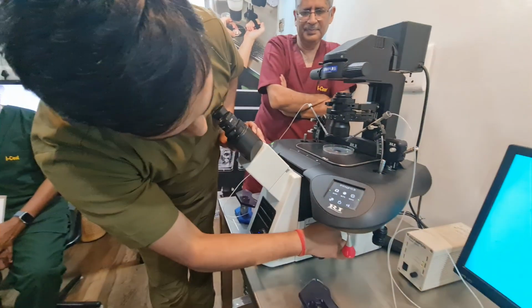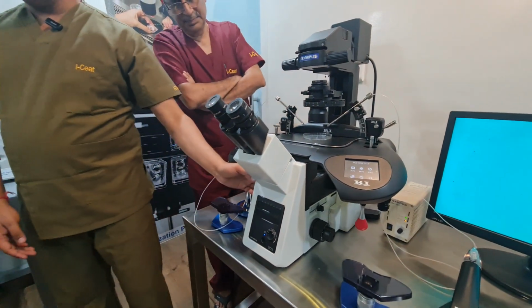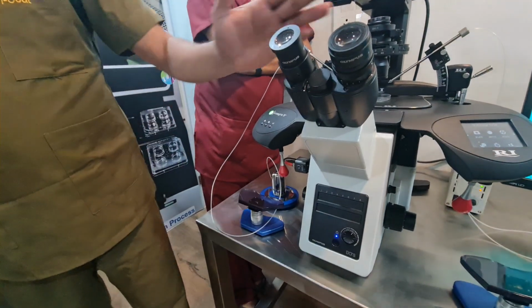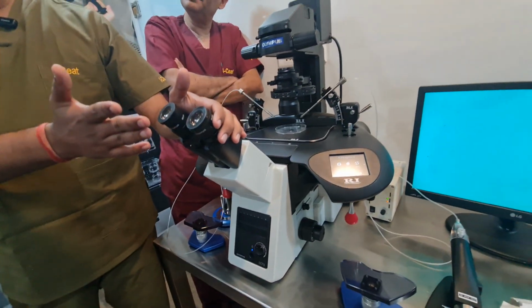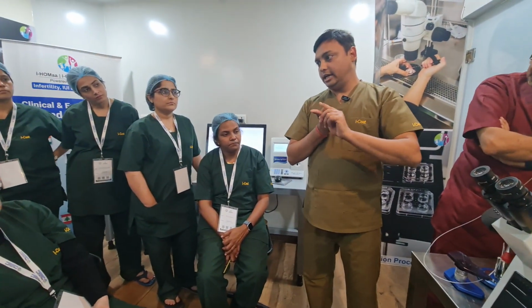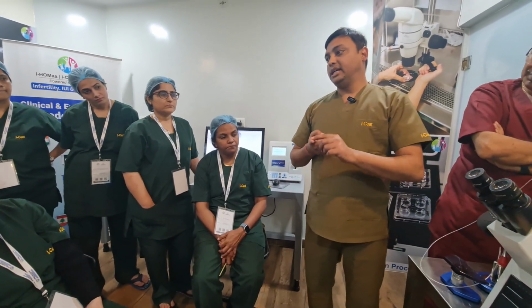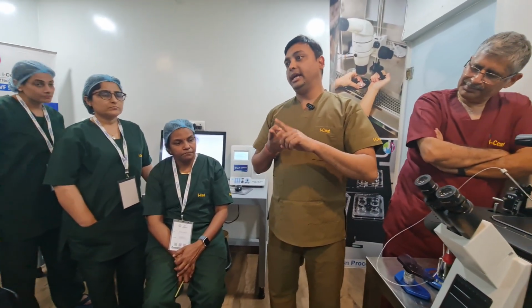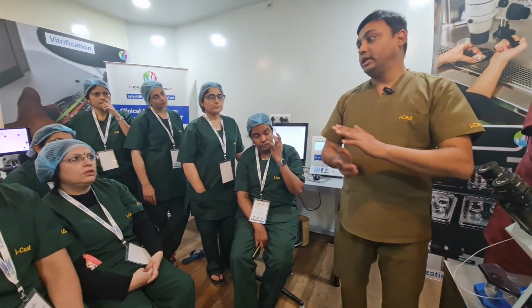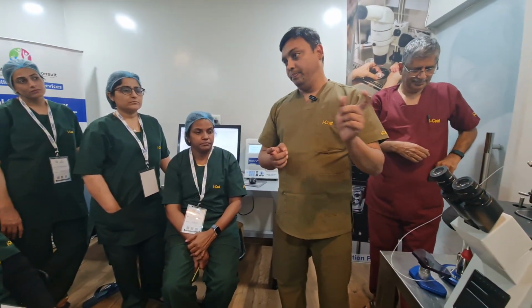In Olympus there is one extra part if you order it, called the magnification changer. Here you have a 10x eyepiece, right? And the objectives you get with the microscope are 4x, 10x and 20x. If you get the magnification changer, the options are 1.6x and 2x. So once you reach 20x and you put it at 2x, it means you will reach 40, and 40 into 10 means 400 times zoom, correct?